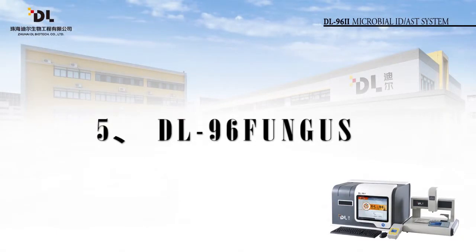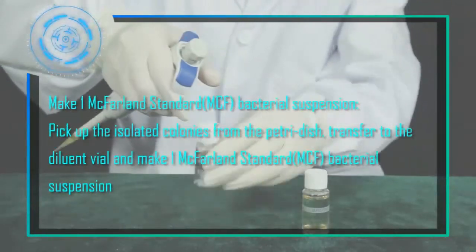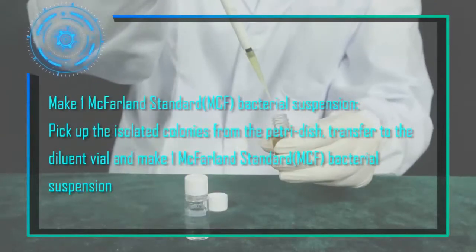5. DL96 Fungus manual way. Step 1. Make 1 McFarland standard bacterial suspension. Pick up the isolated colonies from the petri dish, transfer to the diluent vial, and make 1 McFarland standard bacterial suspension.